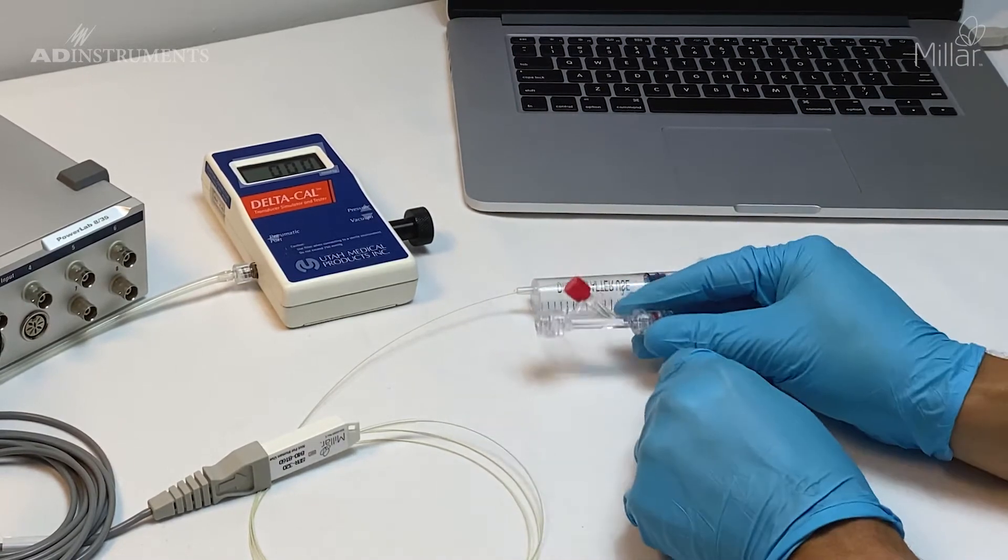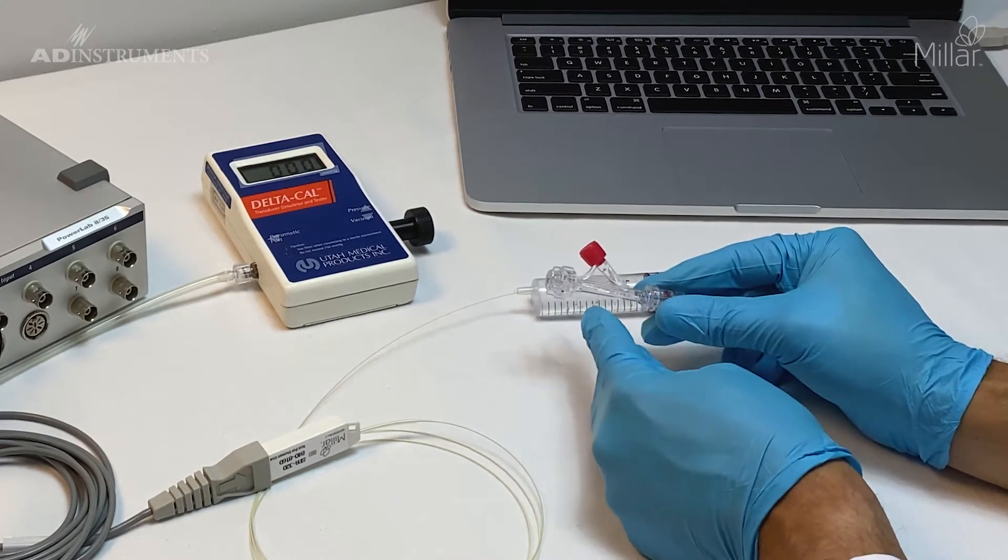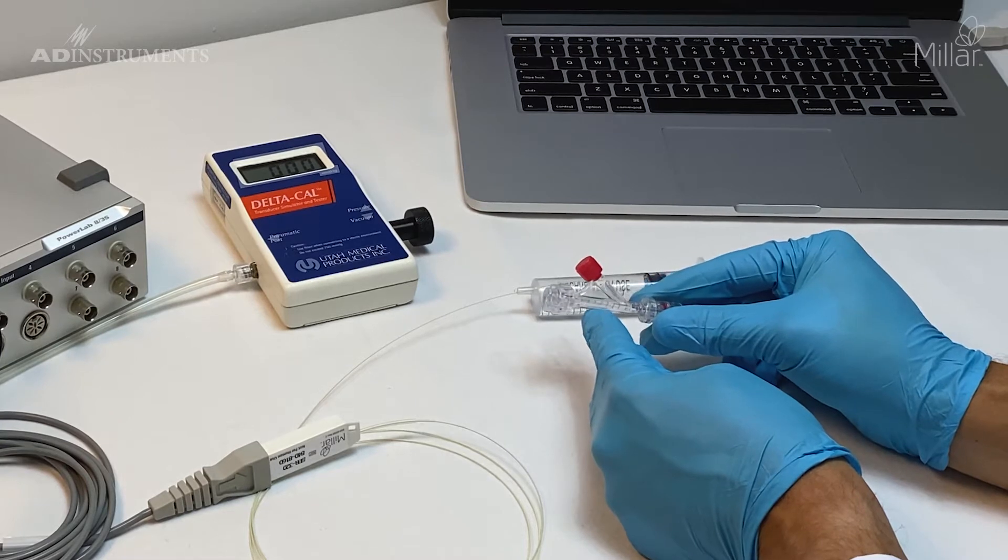Now we have a hemostatic valve filled with saline, and I can insert the catheter into the saline in the middle.